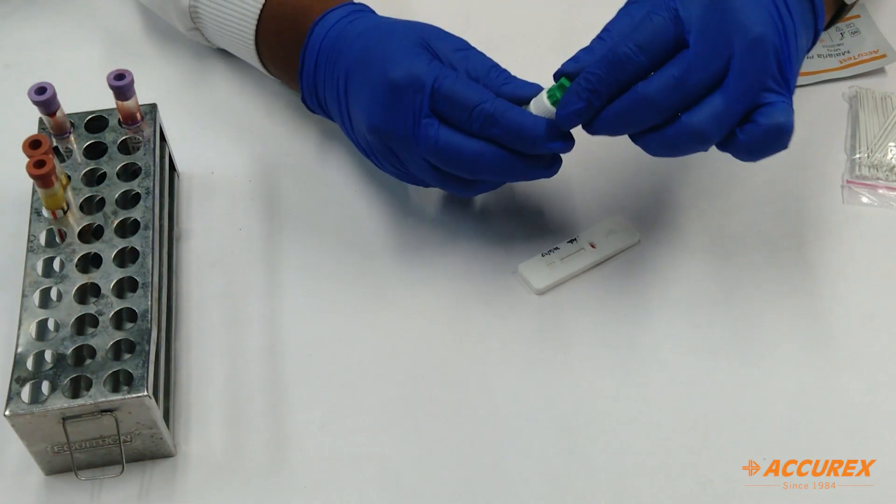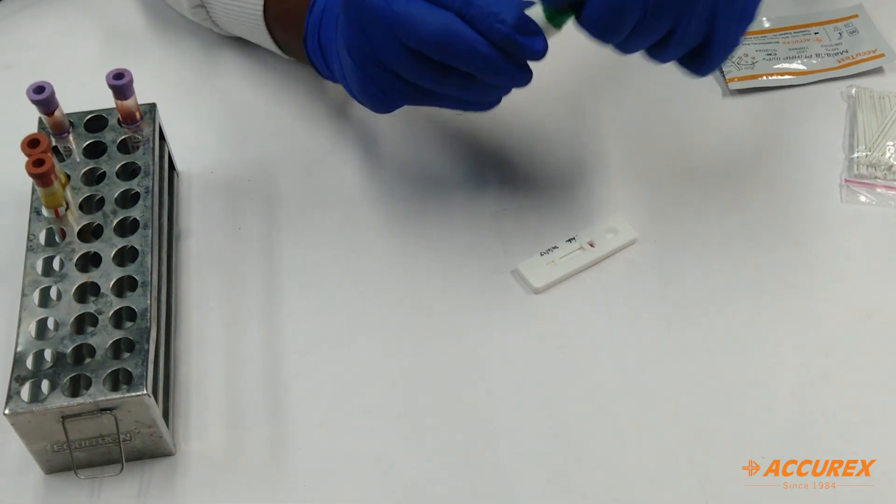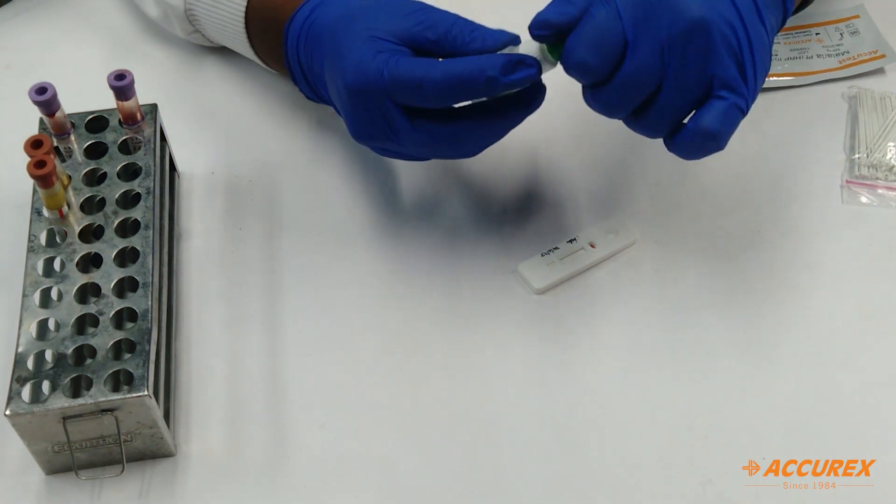Then you need to add 4 drops of buffer in the buffer well.